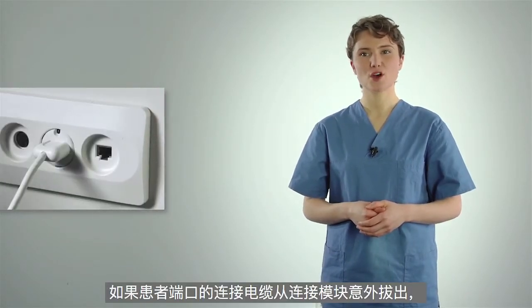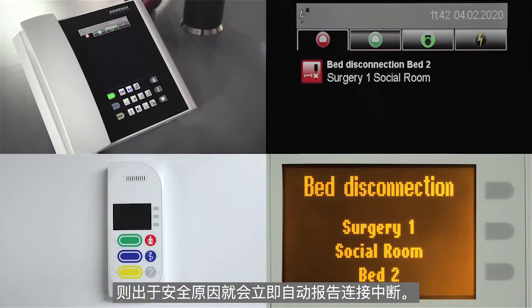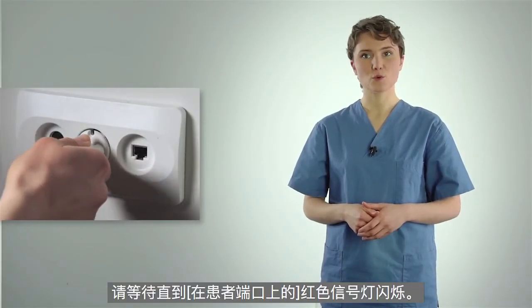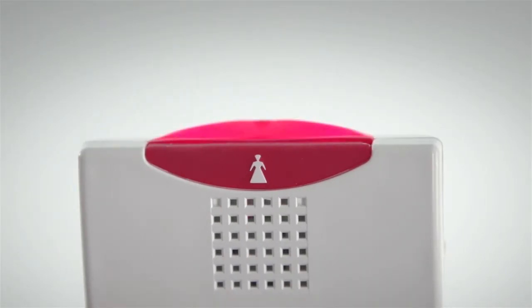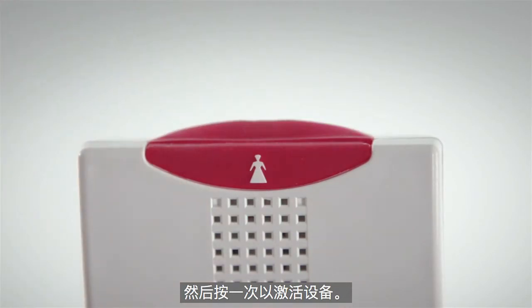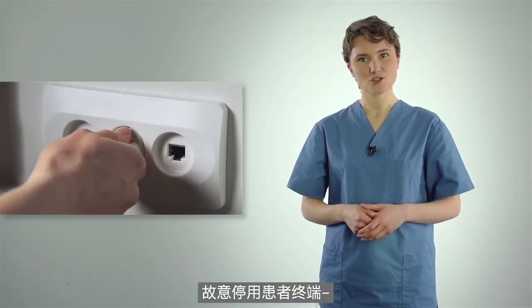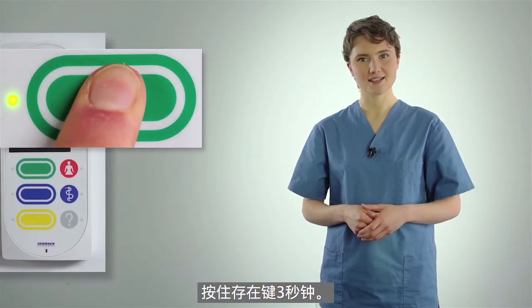If a patient terminal's connection cable is accidentally removed from a connection module, the disconnection is reported immediately for safety reasons. After reconnecting the cable, please wait until the red signal light on the patient terminal blinks, then press it once to activate the device. The light goes out and the device is ready for use again. To intentionally deactivate a patient terminal — for example, if the bed is no longer occupied — press and hold the presence button for three seconds.